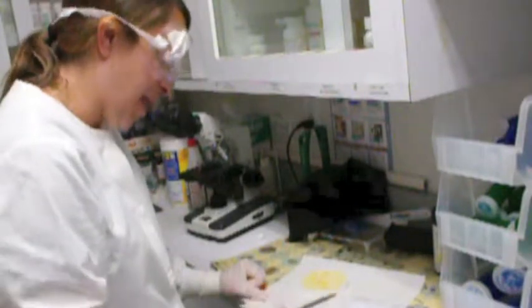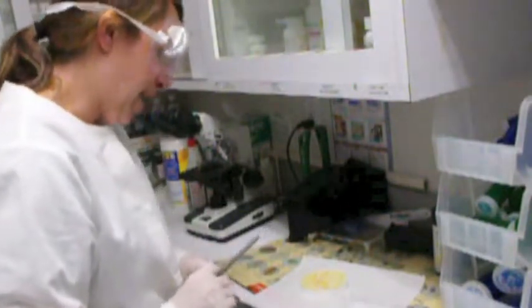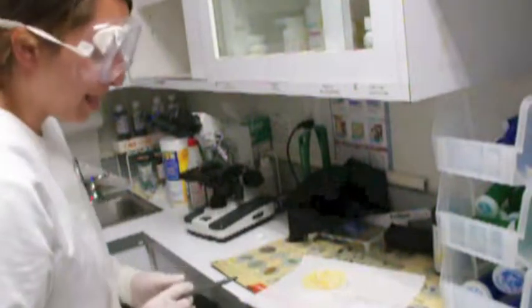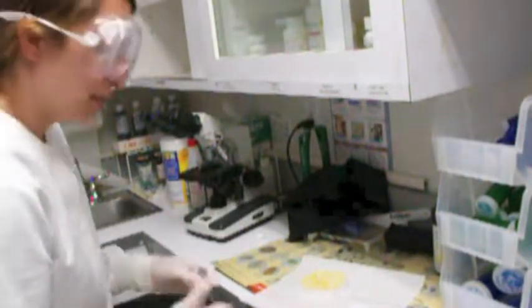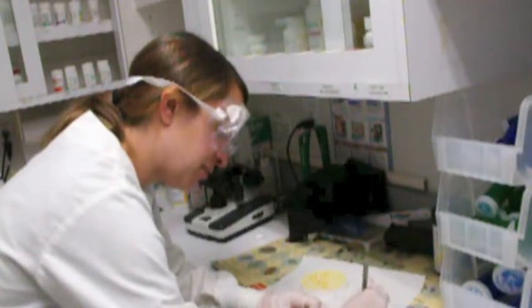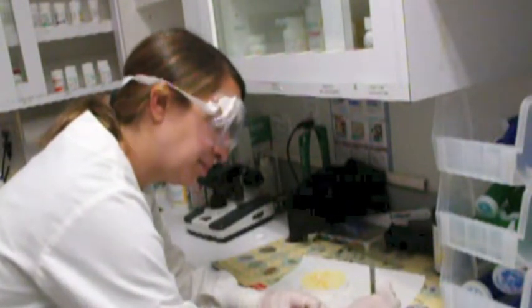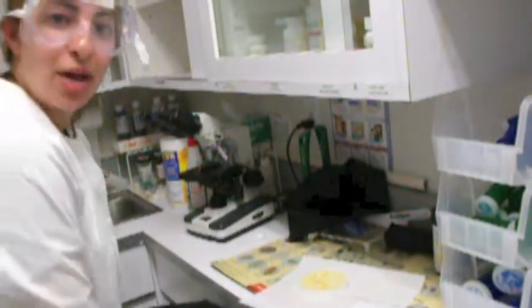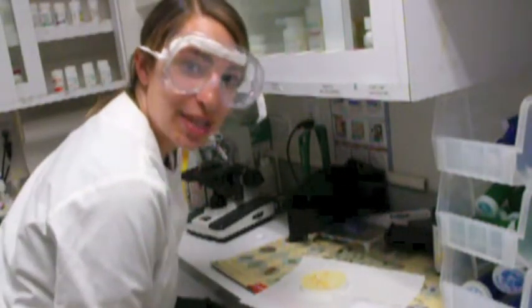This specific bacteria may actually benefit from a different antibiotic that I did not put on this sample here. So I just wrote after 24 hours after disc. So this is how you would perform a bacterial culture and sensitivity test.